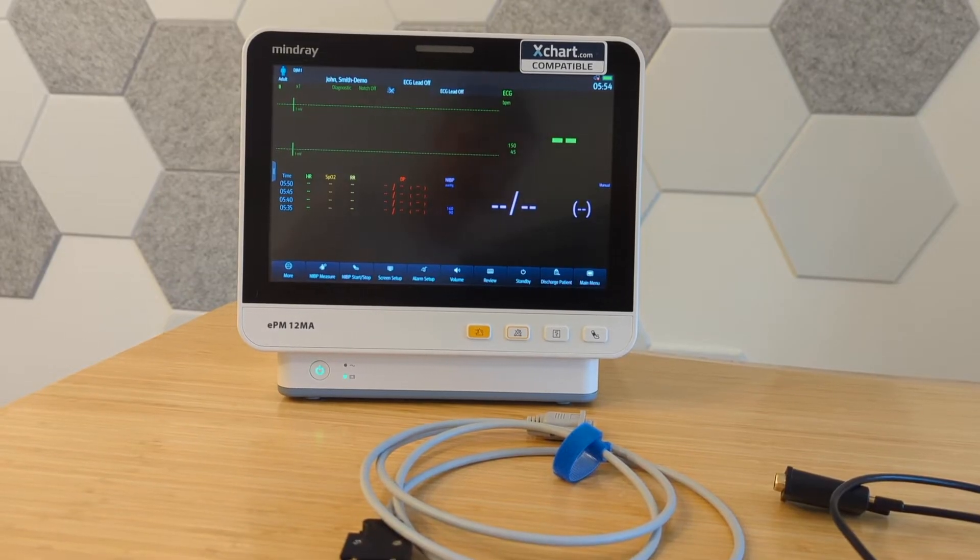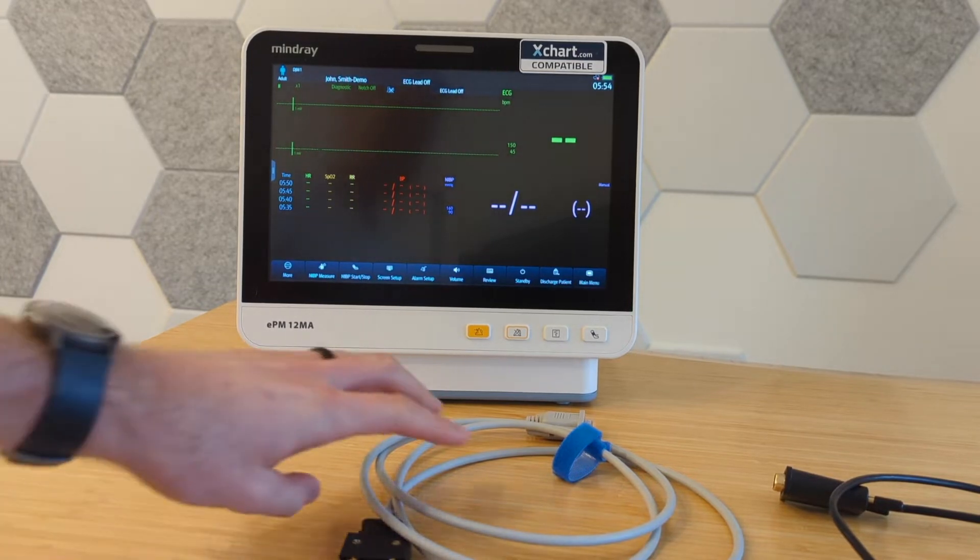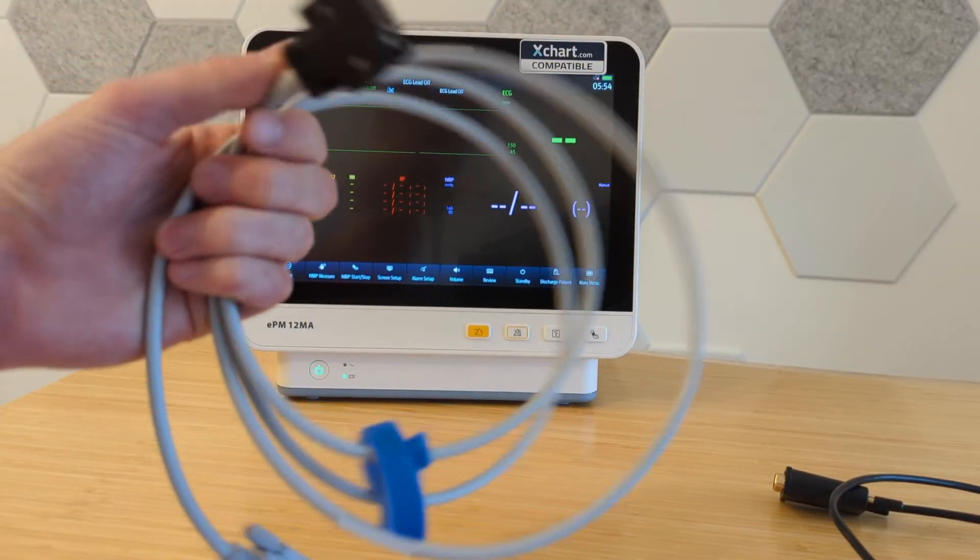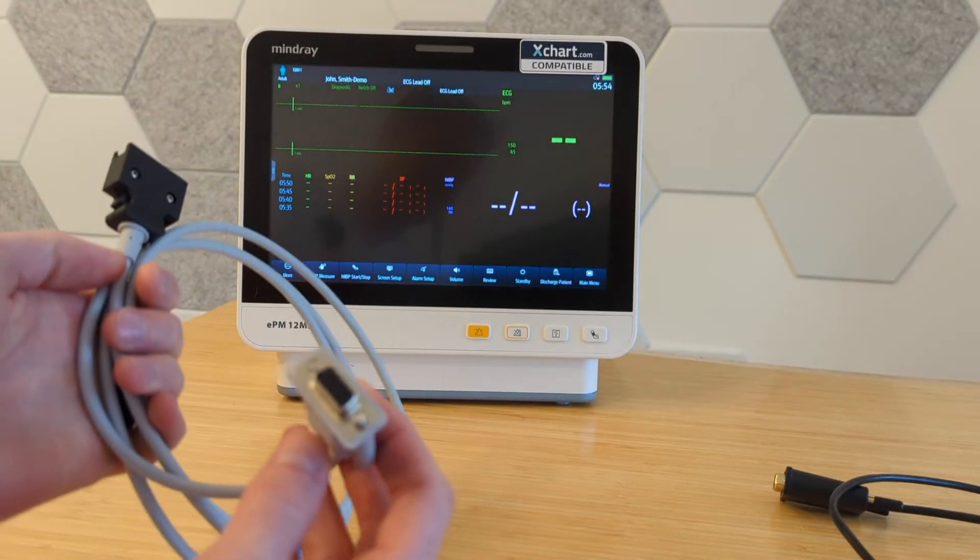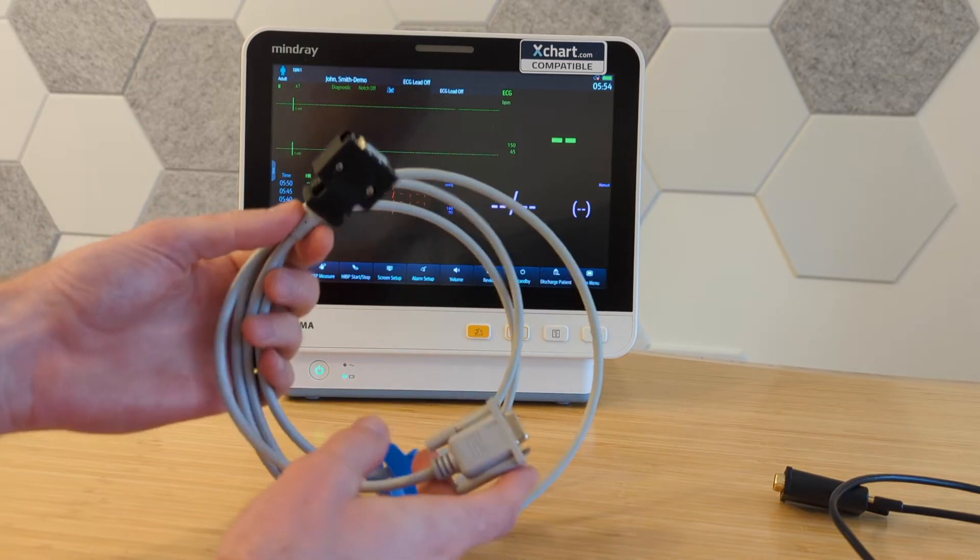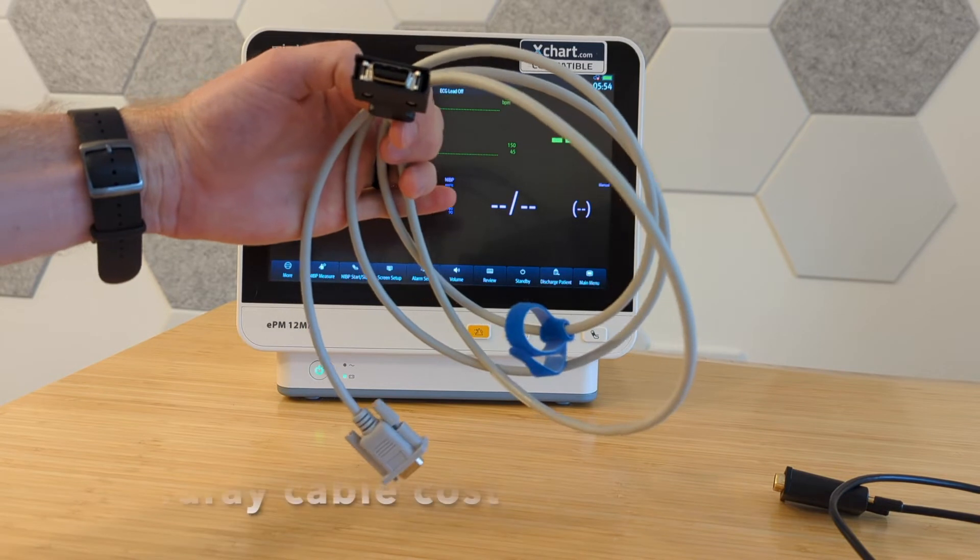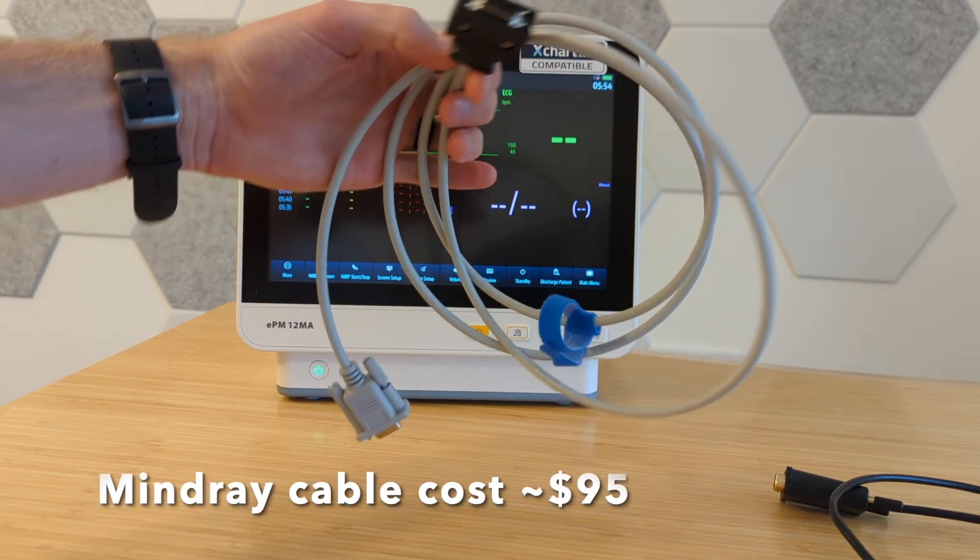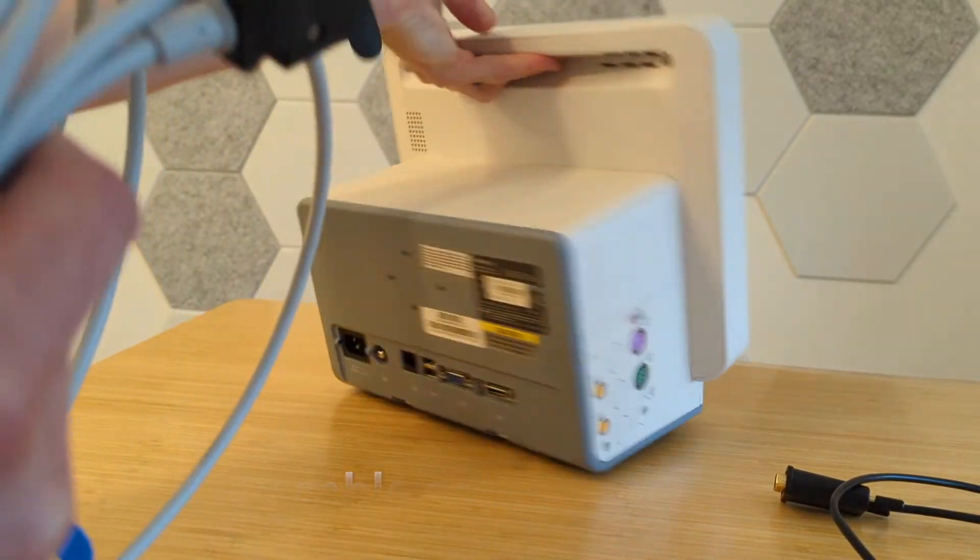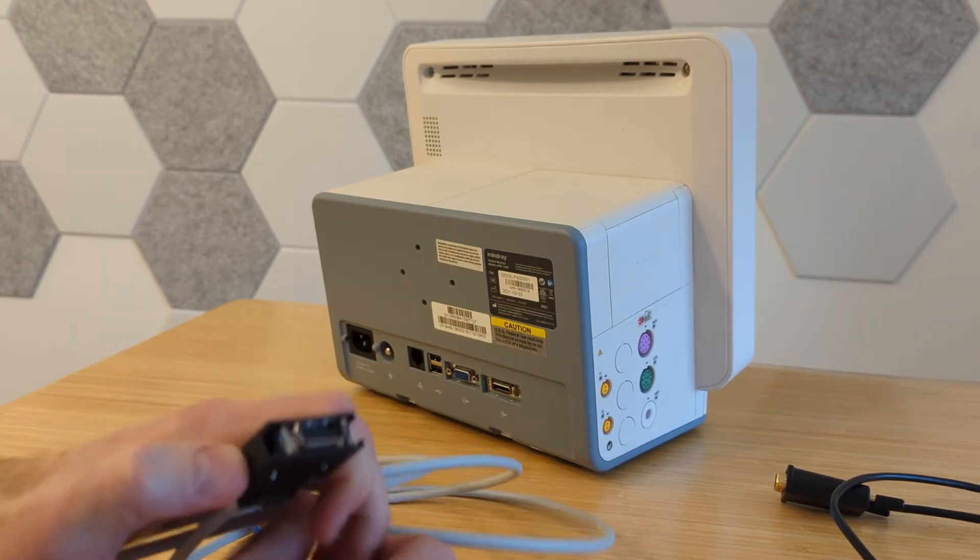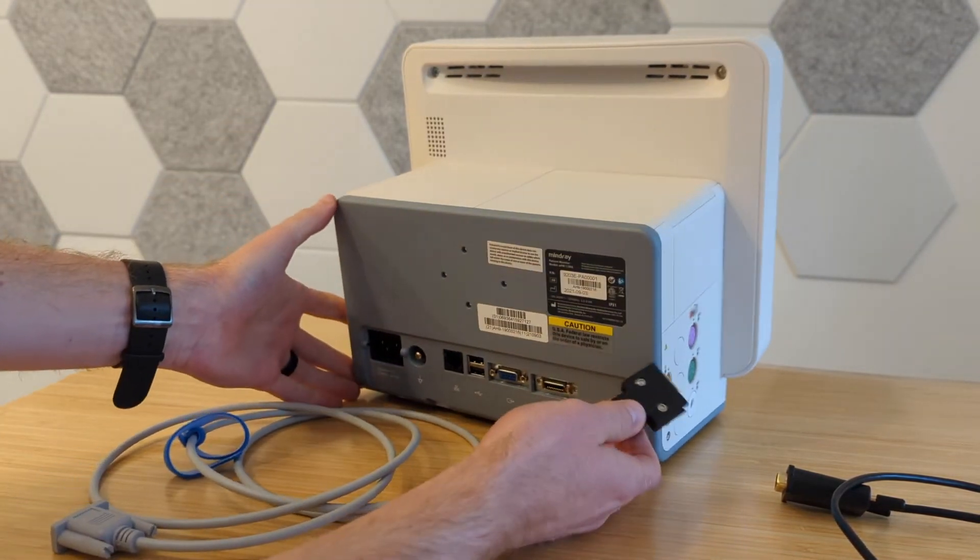For the MindRays, there are two specific components, cables that you'll need. First of all, is the one that you can get from MindRays. So they have this kind of proprietary connector on one end, and then that takes it to just a standard serial port on the side. So the very first thing, you need to get this from MindRays. They charge, I think, like 95 bucks for it, at least they do as the time of this recording. But yeah, it's pretty simple. You get it from them. And we can connect you with someone who can help you get it if you don't have one.